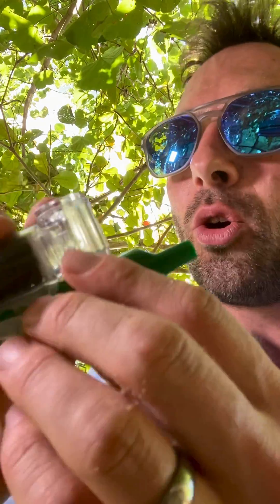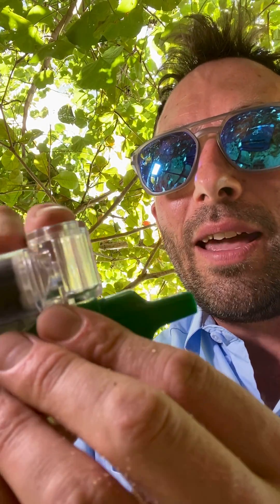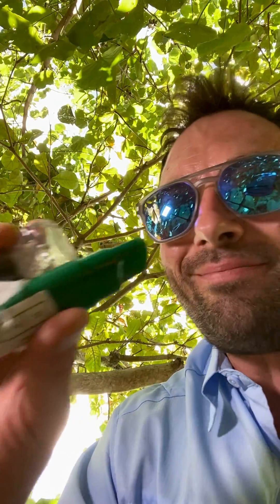I'm not going to suck on it because it'll probably knock my socks off, but ideally the patient forms a good seal around the mouthpiece and also breathes out through the mouthpiece. That makes sure that any off-gassing is captured by this carbon filter and doesn't knock the rescuer out. There's also a handy little diluter hole here like a recorder, and if the patient presses their finger on there it means that more air is entrained through the wick so you get a beefier dose — nice little feature that.